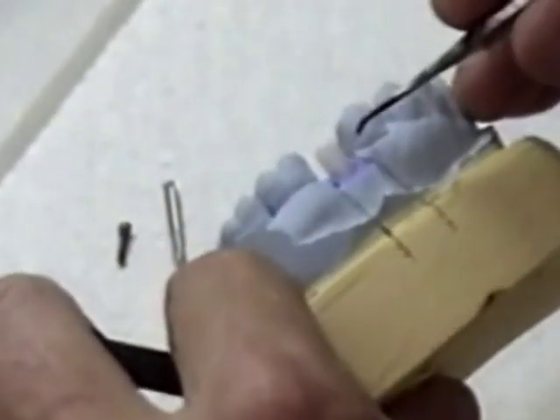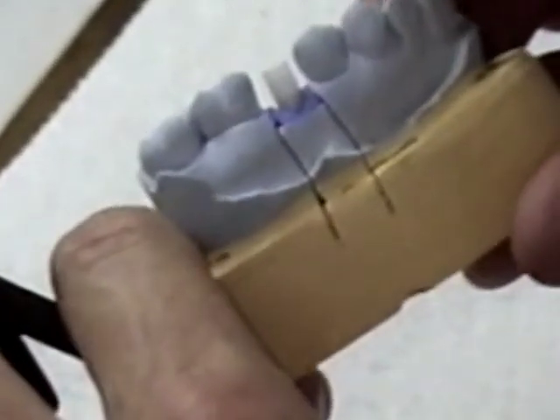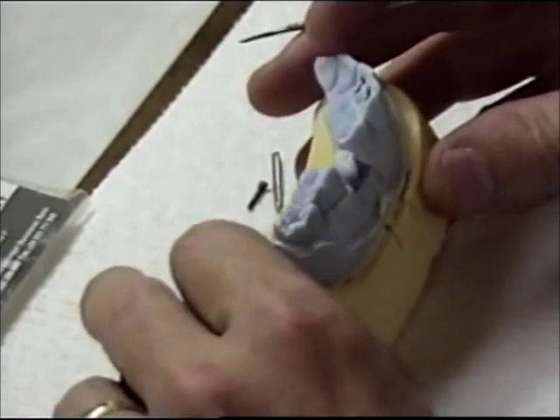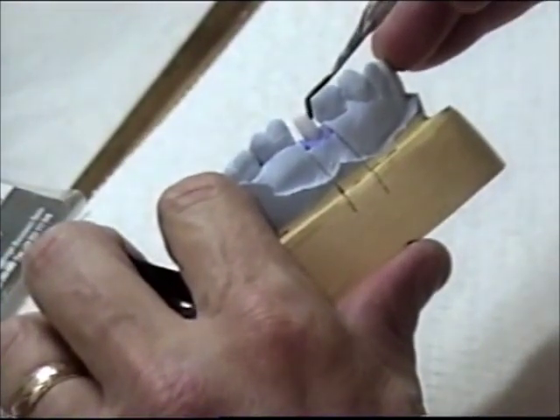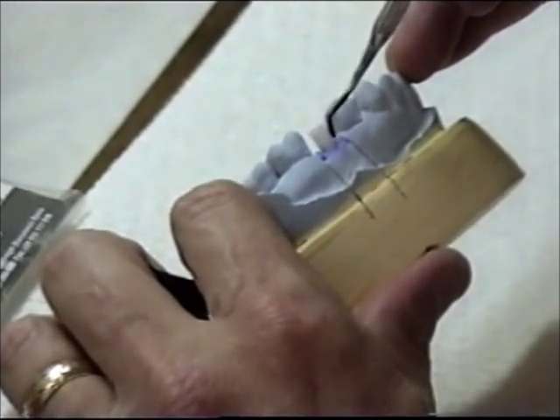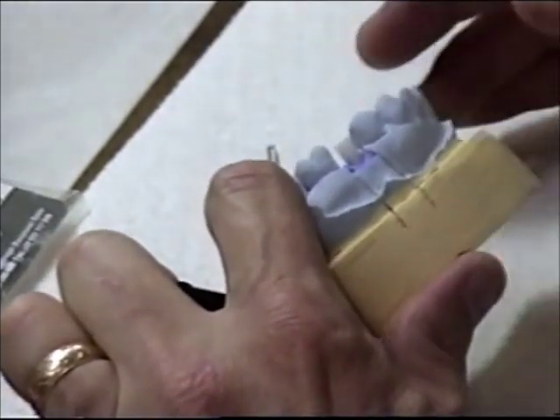It is really a pretty good job — centered pretty well. I should not have any trouble there, and it looks like the draw is going to be very nice. So the first thing I am going to do is put wax all over the cylinder. You don't want to burn out these plastic cylinders without putting a flash of wax on them because you may have some cracking in your investment if you just leave it as plastic.